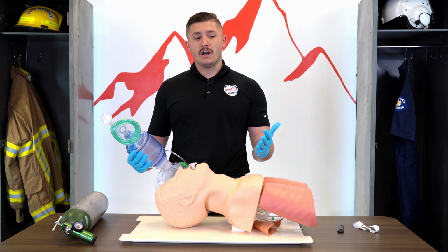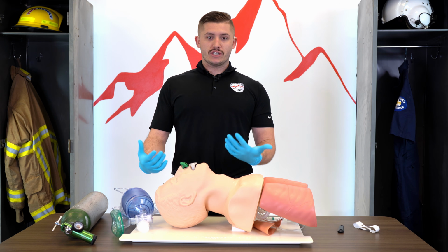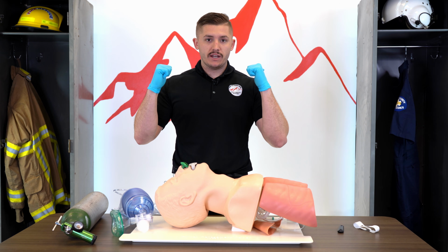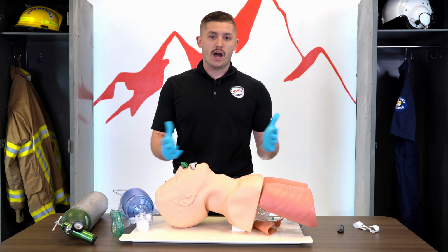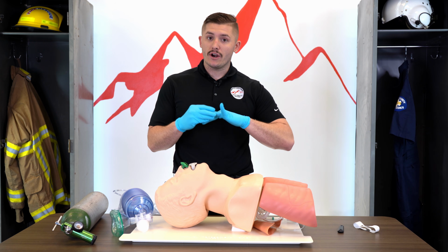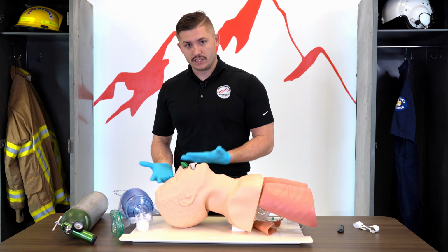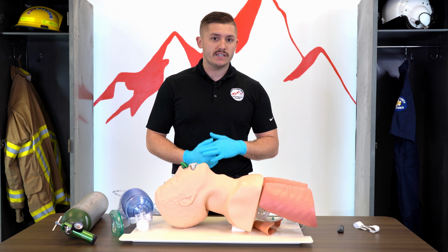Previously, what we talked about with the oxygen delivery devices of the non-rebreather and the nasal cannula, that is oxygenating our patient, right? Our patient is ventilating on their own. They are actively breathing. We can see them pulling air in and pushing air out. But when we take their vitals or we look at their skin, they are not perfusing. They're pale. They might be cold. They might be clammy. We put on our SpO2 monitor to actually read the oxygen saturation, and it could be very, very low. They're breathing, but they're not being oxygenated. So we're going to oxygenate our patient with the non-rebreather or with a nasal cannula.